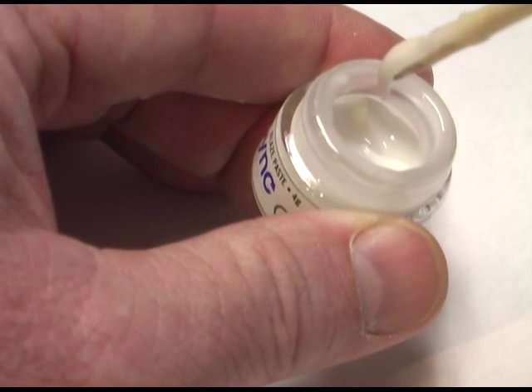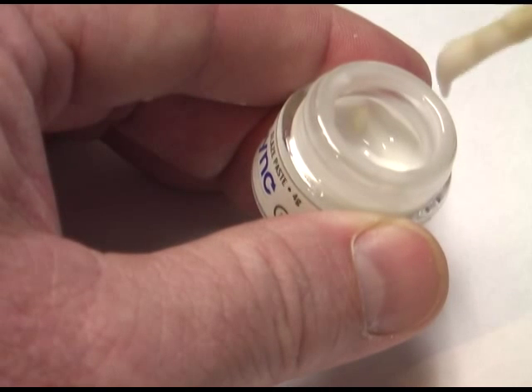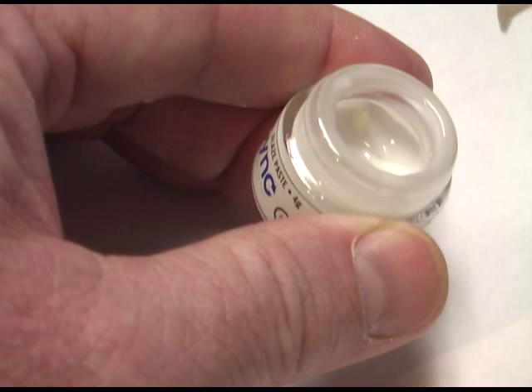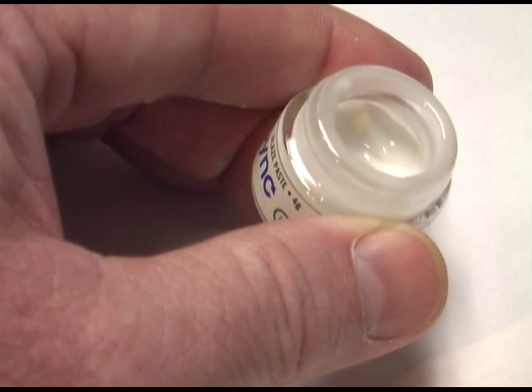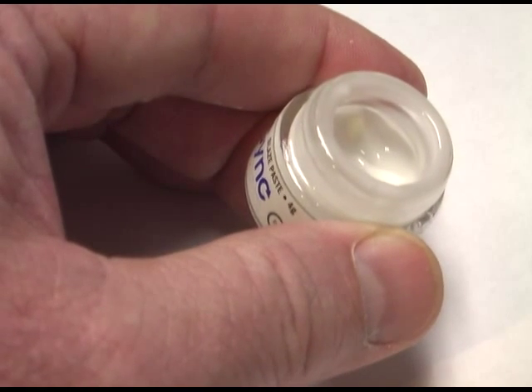I would stir whenever I open up and start the day — when I open up the jar for the first time, I thoroughly mix it. It probably takes about 30 seconds once you've actually done it, even when you open up a brand new jar. Every day I open it for the first time I mix it, and then maybe again after lunch I mix it again. This maintains the optimal consistency of the glaze and gives you that perfect result that you're looking for every time.